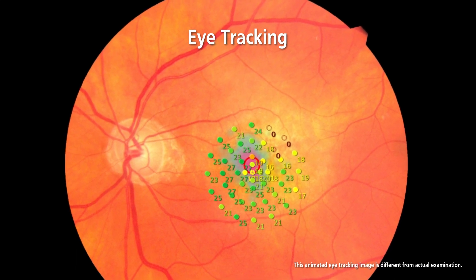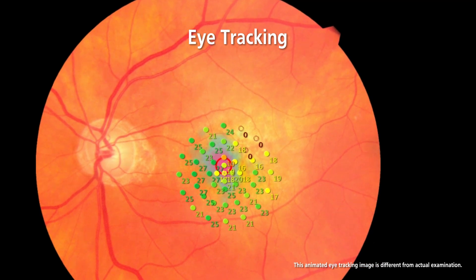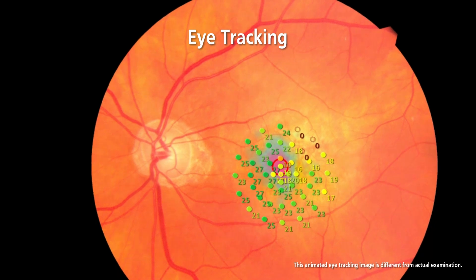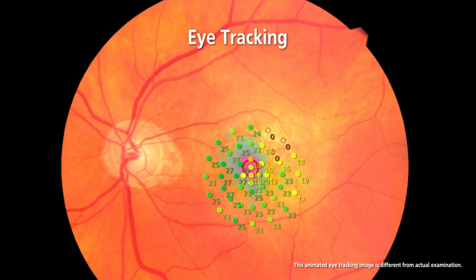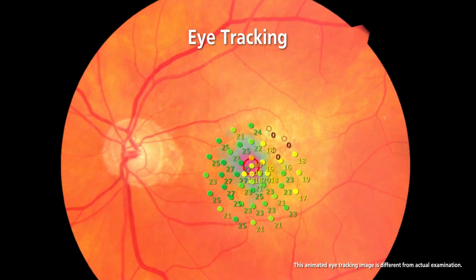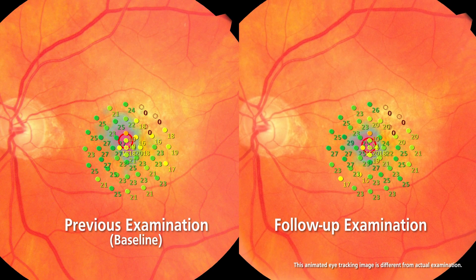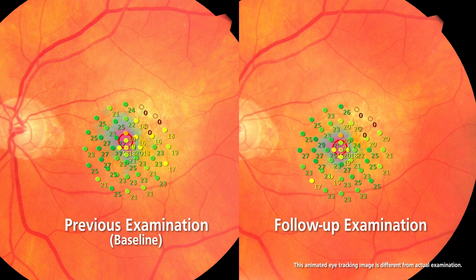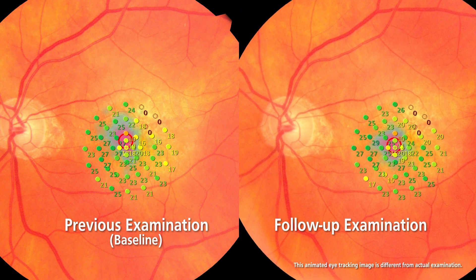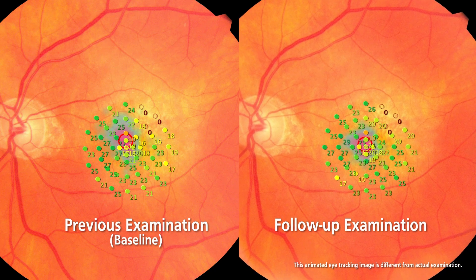Unlike conventional perimetry, the active eye tracker allows real-time visualization of the fundus to ensure accurate placement of stimuli, even in uncooperative patients or those with unstable fixation. Auto-tracking is an important feature during follow-up examinations to ensure the stimuli are placed at exactly the same location as a previous or baseline exam.